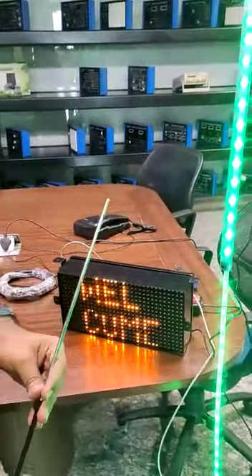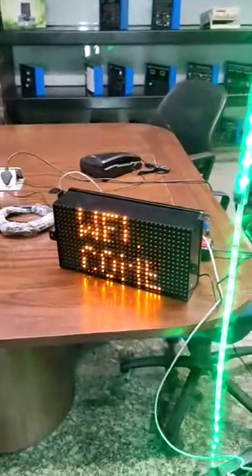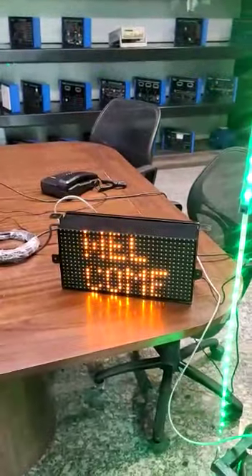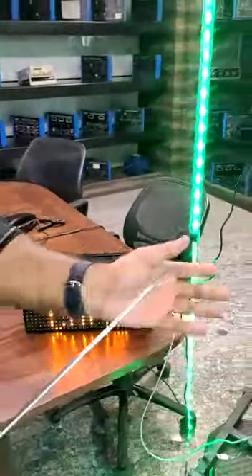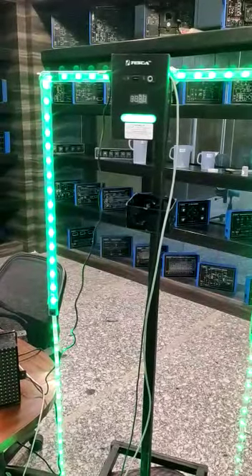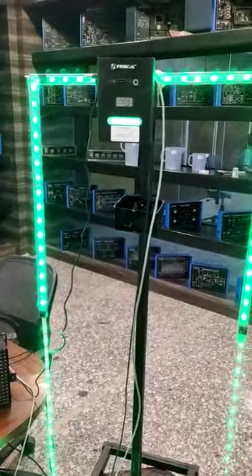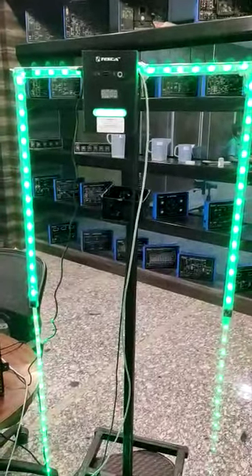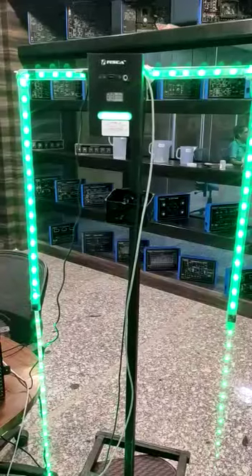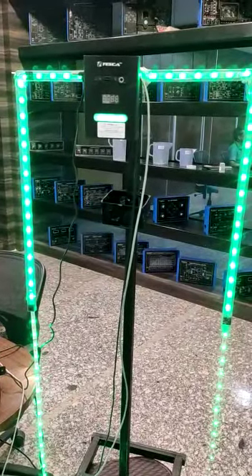So I repeat this operation again. You can see my body temperature as shown on this display board. Whenever any person whose temperature is more than 100 degrees Fahrenheit reaches this machine, they will be detected and prohibited from coming inside, and the LED indicator changes from green to red.